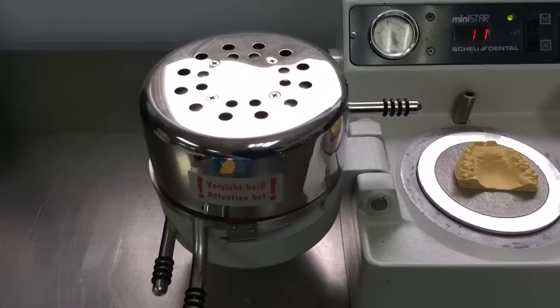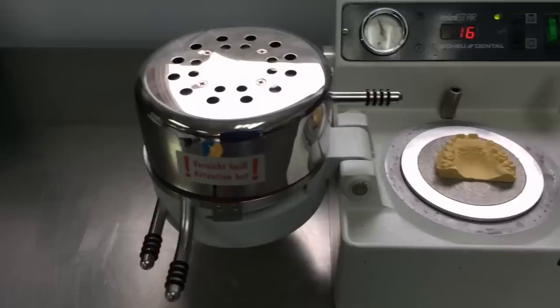And so after a certain amount of time, it's got a little counter on here. After a certain amount of time, it'll be all heated up and it'll be ready to be formed on top of the model.